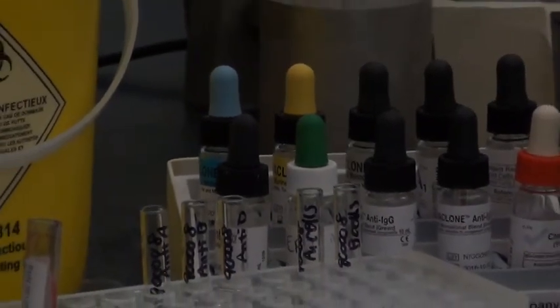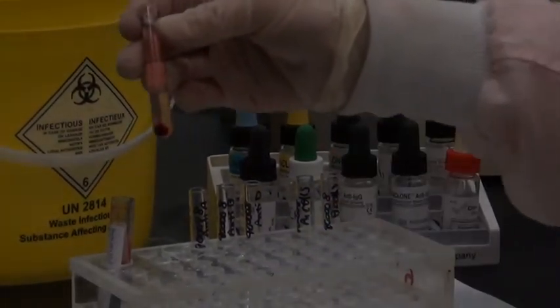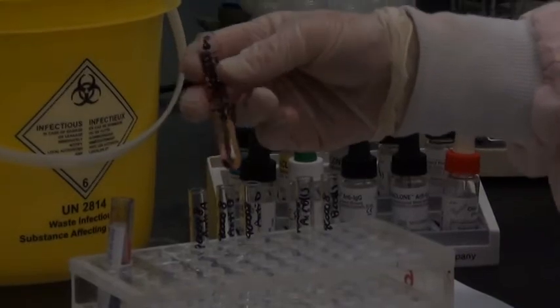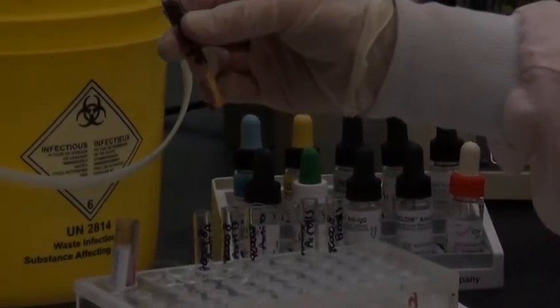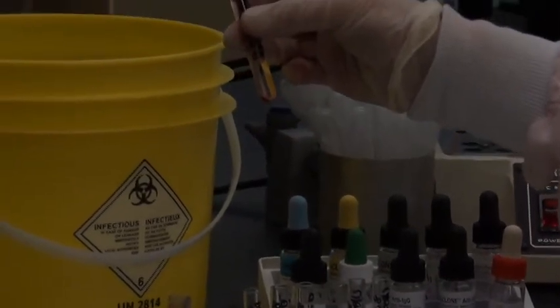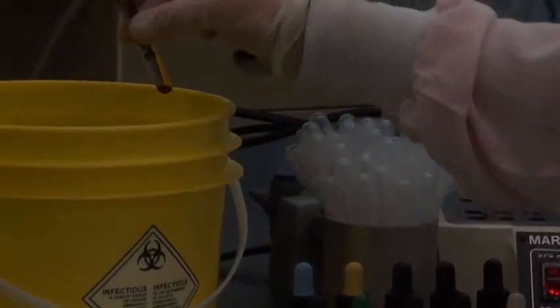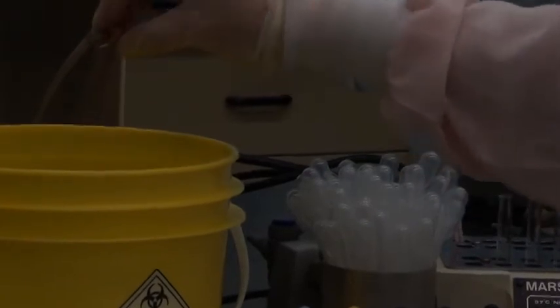Now after three washes, your cells will be ready to make up to 5%, so we'll pretend this is our third wash. And we'll dump that out gently and make it up to 5%.